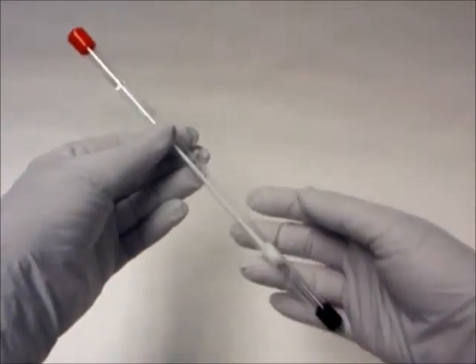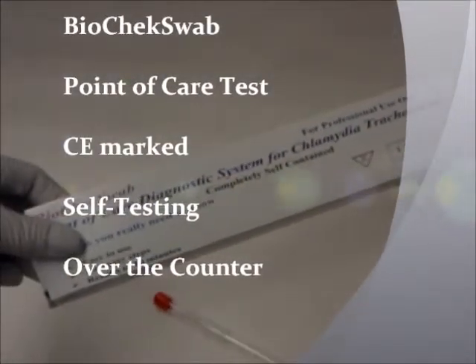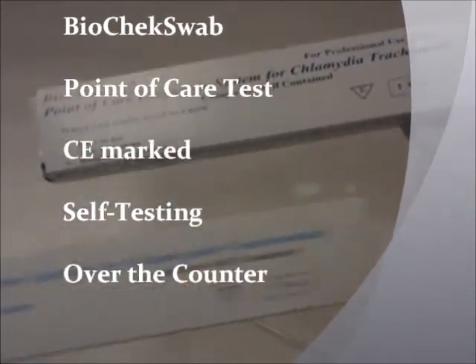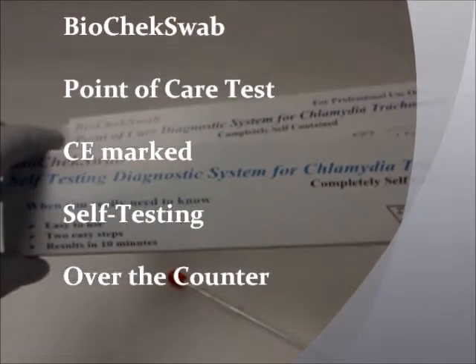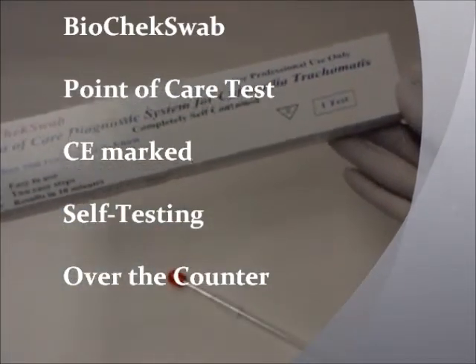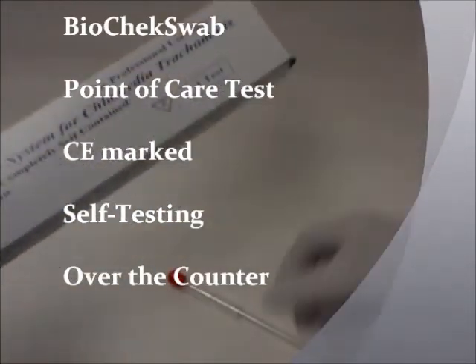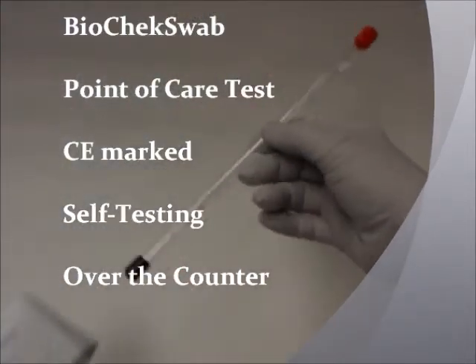The BioCheck swab is the ideal point-of-care test and is also CE marked for self-testing or over-the-counter use. The test can be stored at room temperature and has a shelf life of 24 months from the date of manufacture.